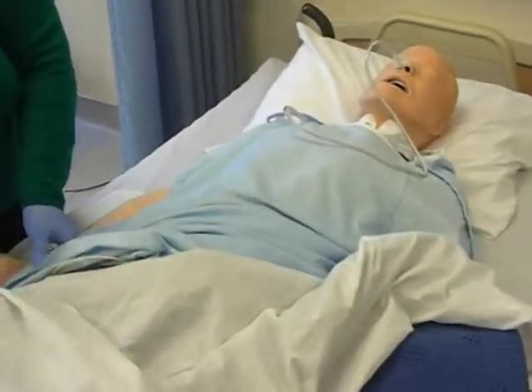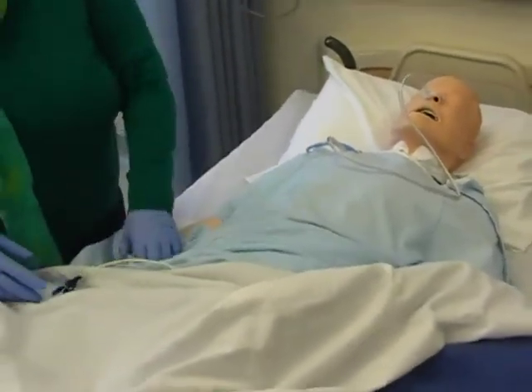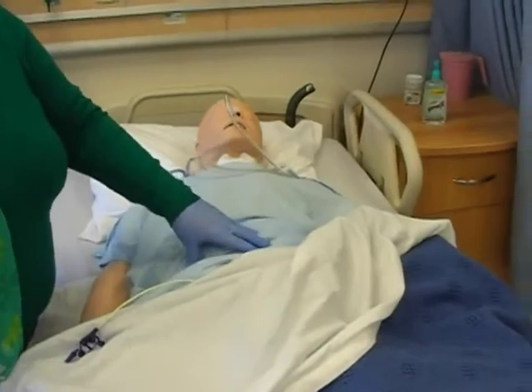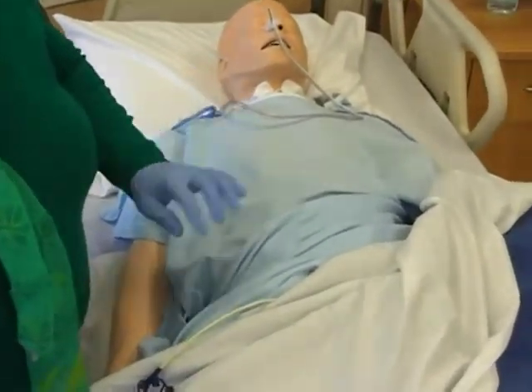This video is all about the gastrostomy tube. Think about it: 'gastro' refers to the stomach or gastric area, and 'stomy' means an opening — so it's going into the abdomen.